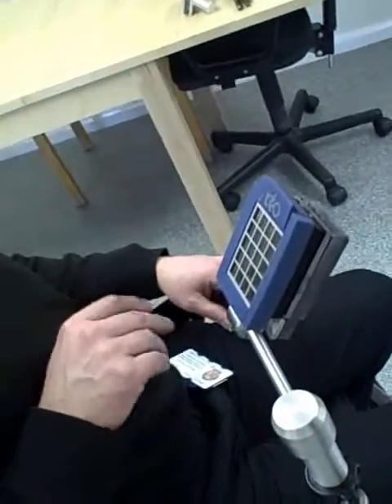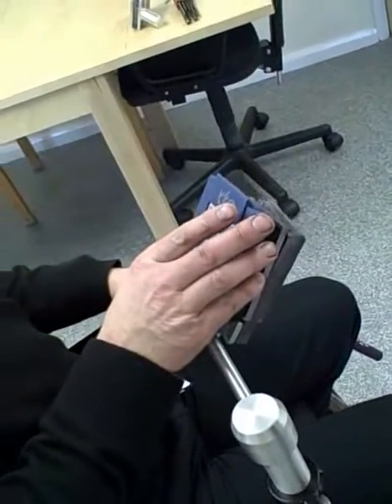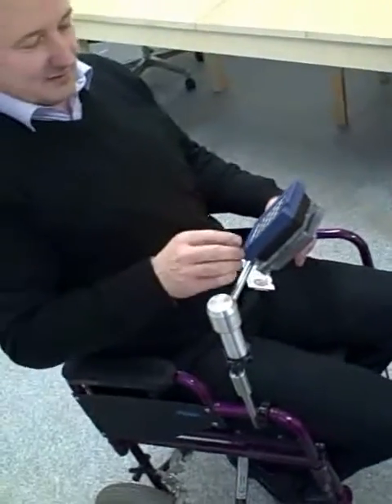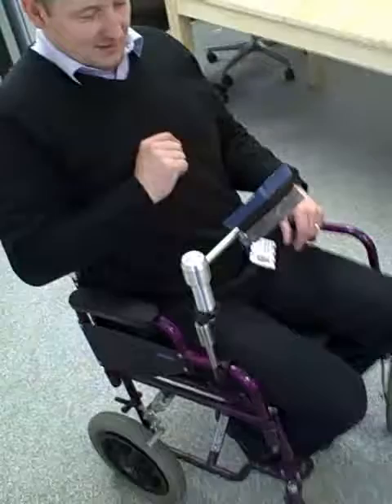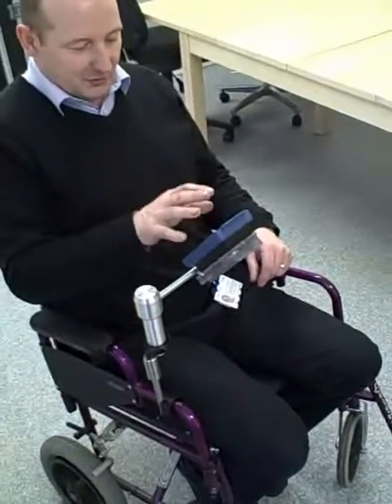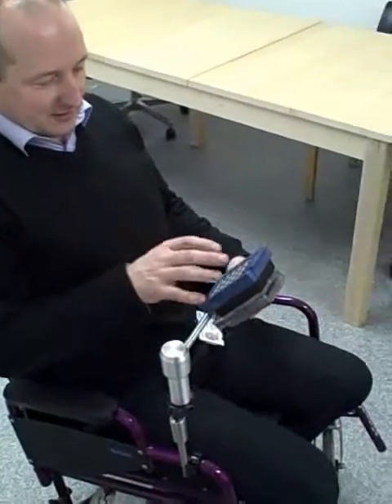It's designed for a guy who has very shaky movement, so he can't use any clips or quick release for these environmental controls. He needs to hold it himself because he's quite independent, so it was made so he can grab the device with a slight twist.